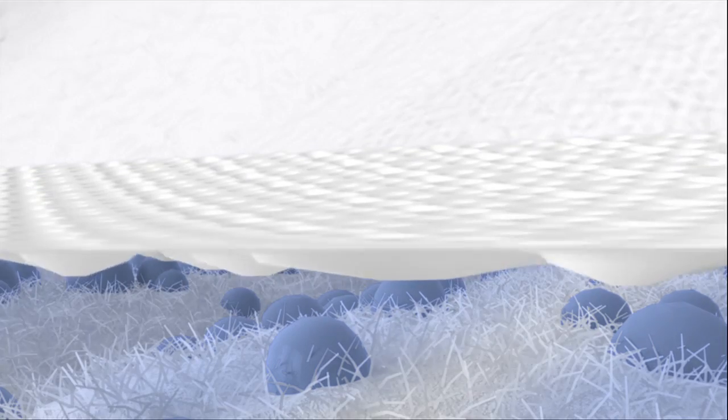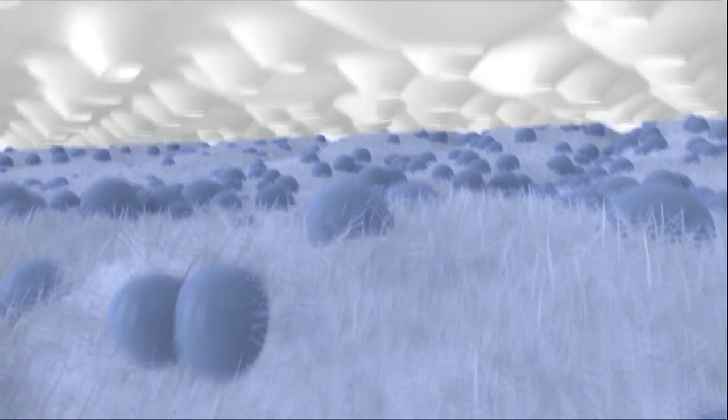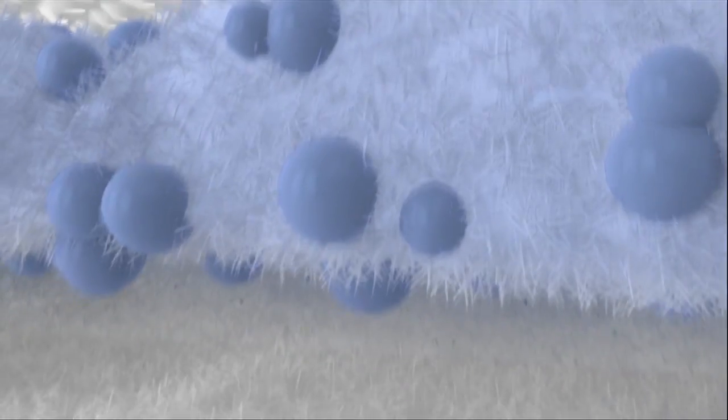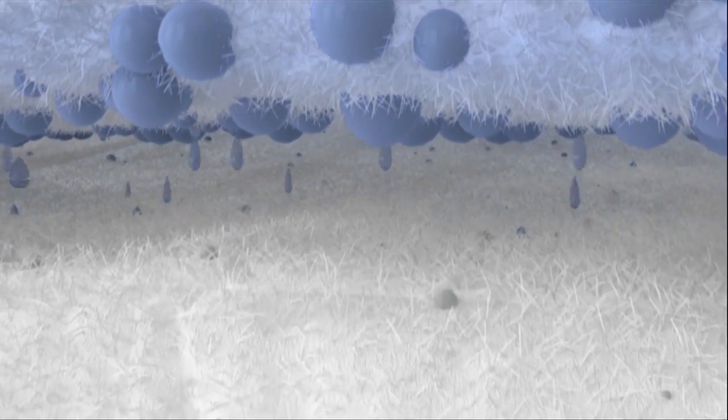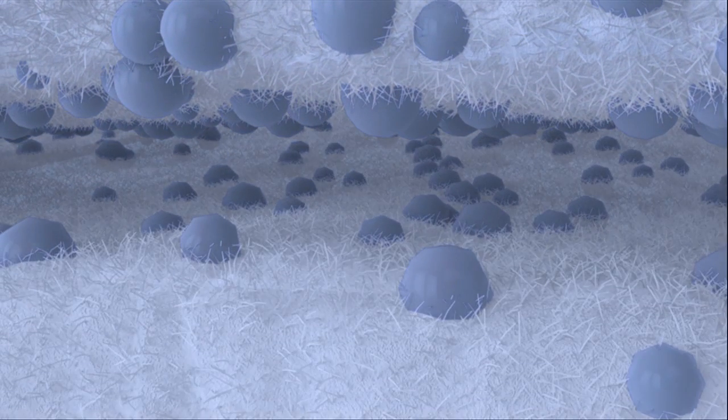Once inside the core, fluid is quickly sealed inside, protecting the skin from the harmful effects of prolonged exposure to moisture. This also promotes user dignity.